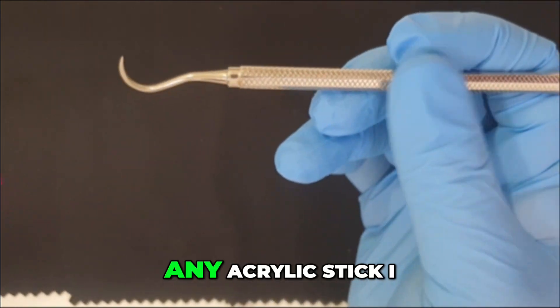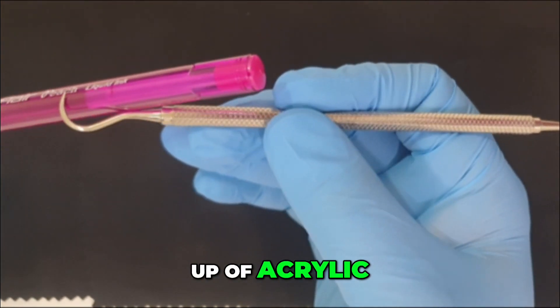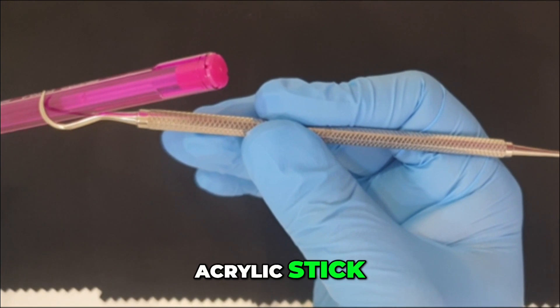Since I don't have any acrylic stick, I am using this pen, which again is made up of acrylic. And I will try to slide the instrument over the acrylic stick.